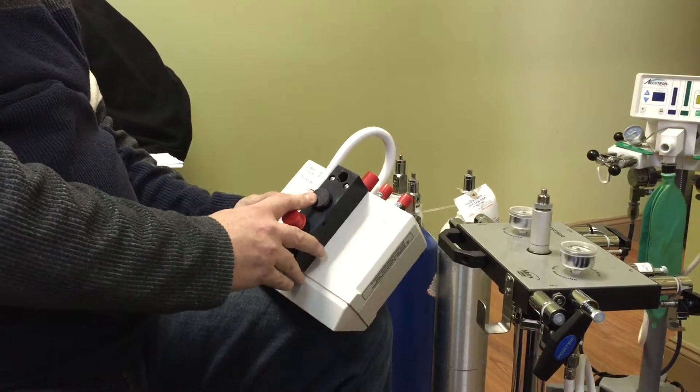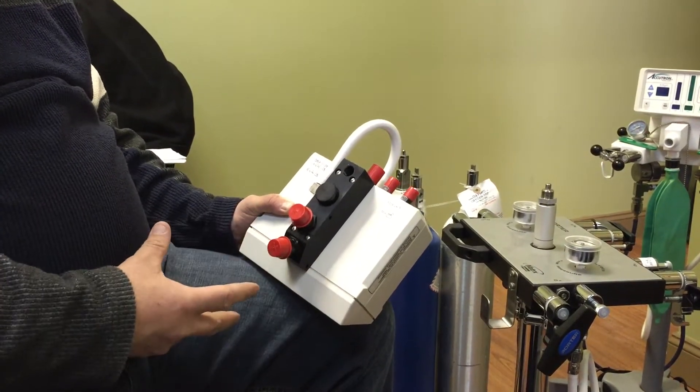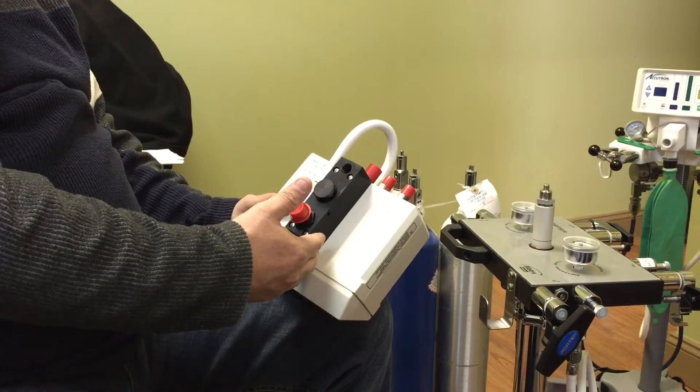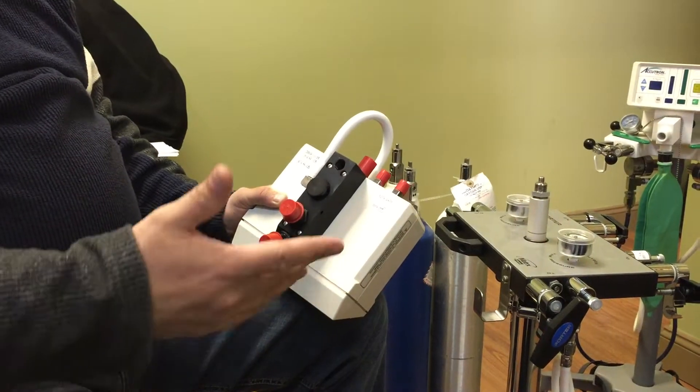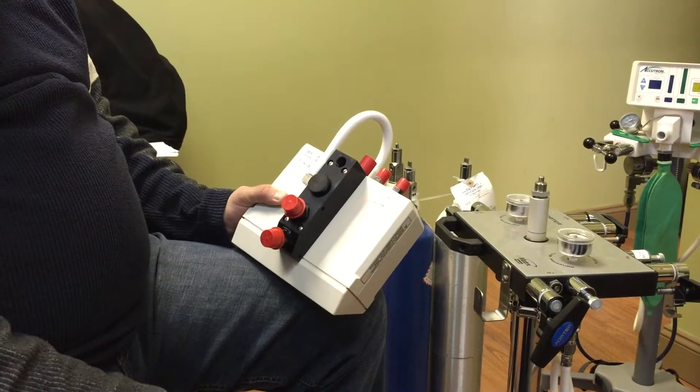This is a pop-off valve. If ever there's any obstruction, no more gas flowing to the patient, this valve is what's going to pop open and have them breathe air from the room.